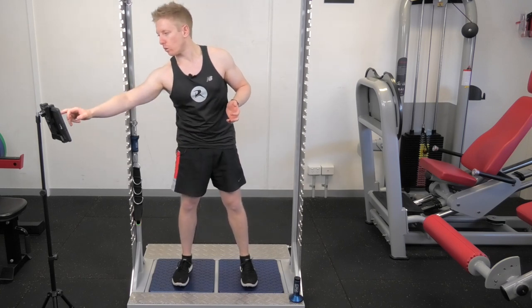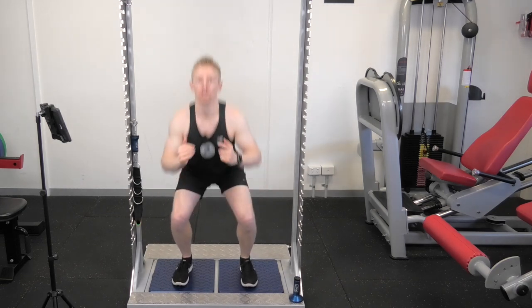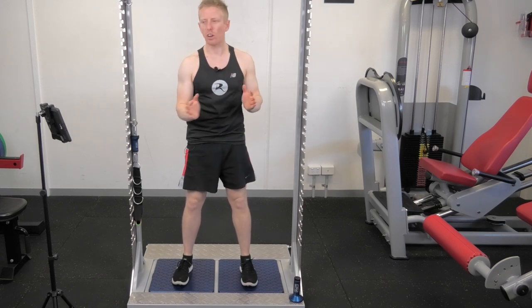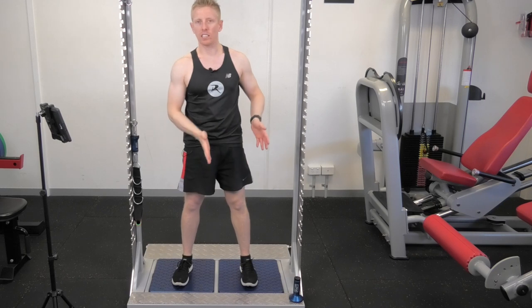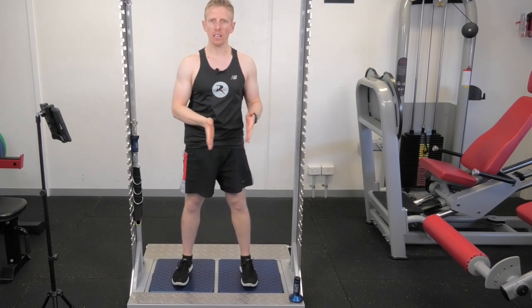The first one I'm going to do is the squat fast — I'm just going to start that off and go as fast as I can. One, two, three. What did you see there? Shifting left or right — where was that weight going? Which leg do you think I was loading 12% more through? Can you tell — left leg or right leg?